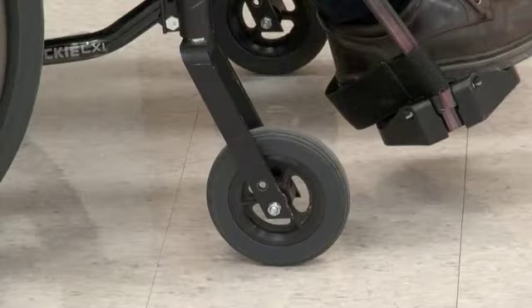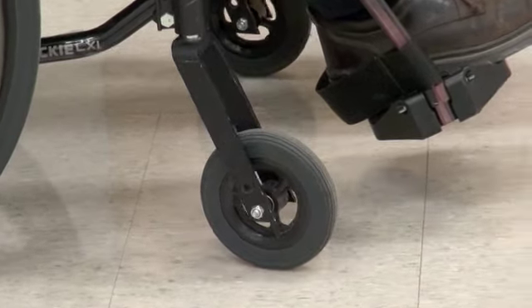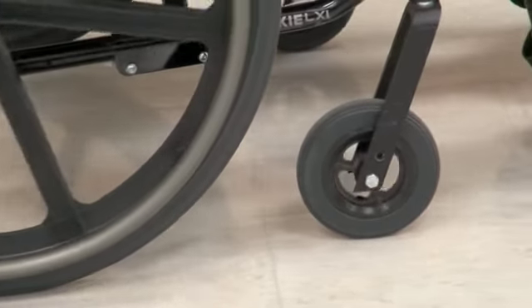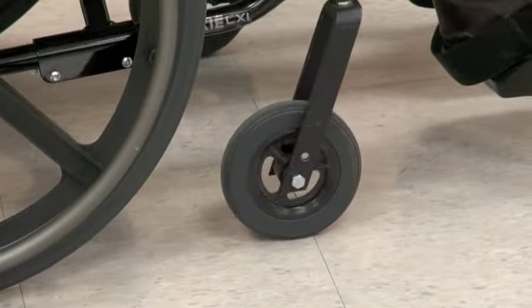When they pivot, the casters do not swivel around their center. This means they extend further away in one direction. For example, when you propel forwards, your casters will follow along pointing backwards.